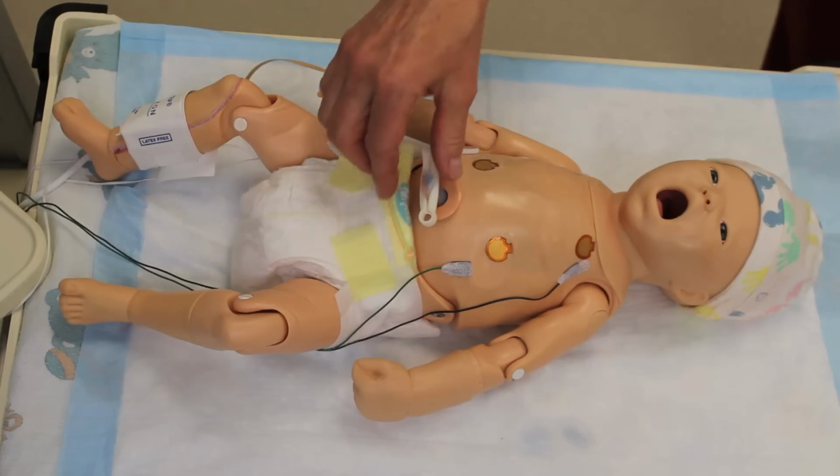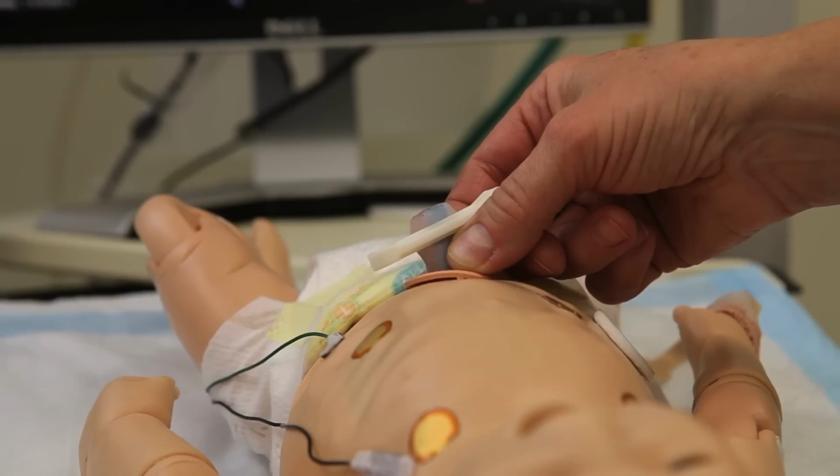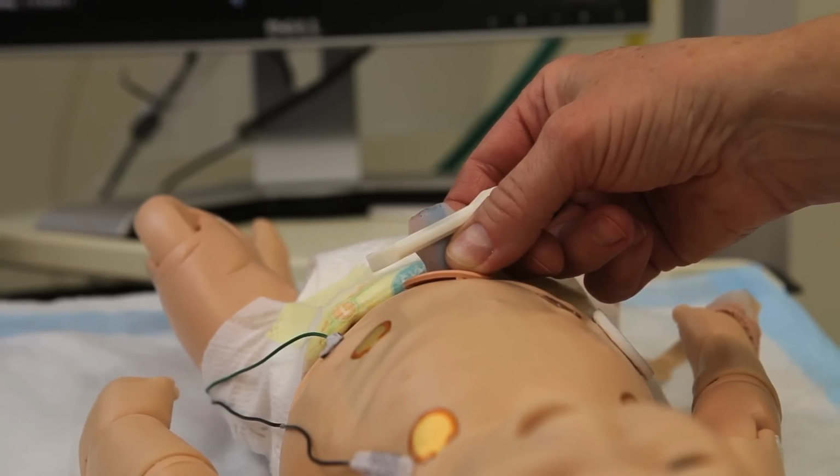If the baby is newly born, you'll also be able to palpate pulses at the umbilical cord. The pulses are much more easily felt if you put on an umbilical clamp first. Be certain that you don't squeeze too hard when you're feeling the pulse, because it will be difficult to feel it if you press too much.